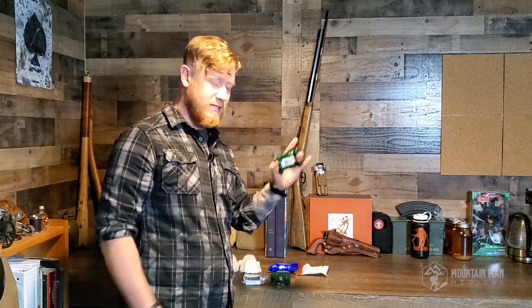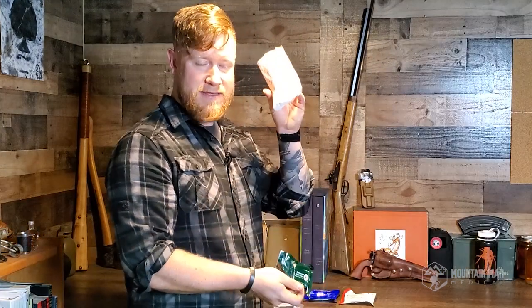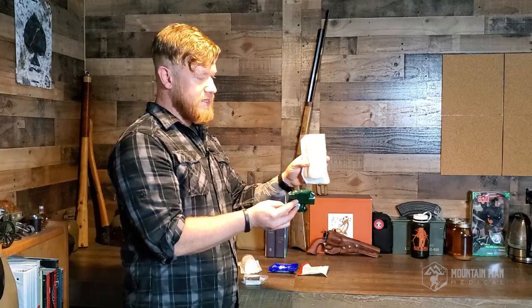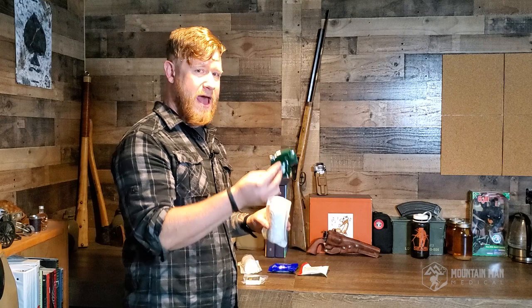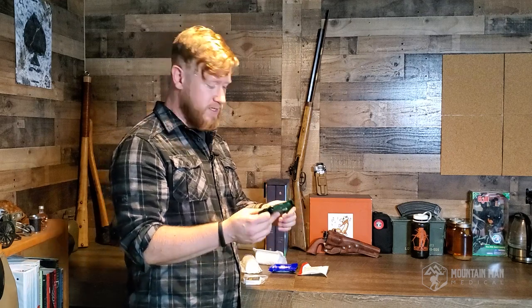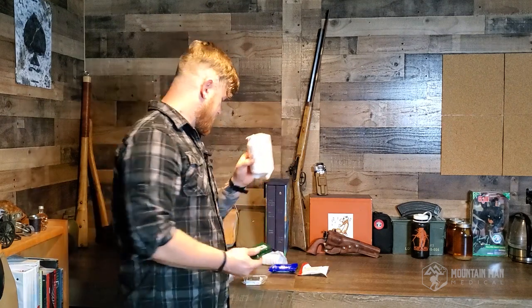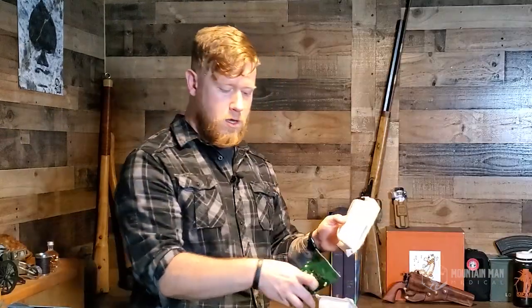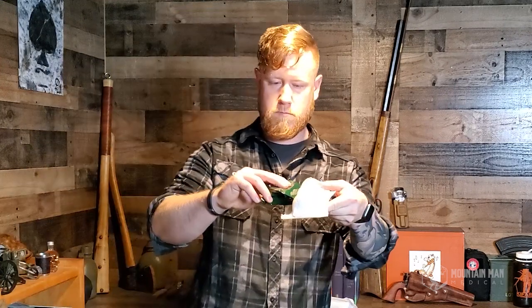Having something like this compared to this is generally a pretty good idea, and this is the exact same size. The reason for that is because this isn't vacuum packed — this is. So this has got a lot of extra air in it. To get around that, they vacuum pack it in these nice tiny little squares, and these squares are pretty dense. Once you got all of the air taken out of it, it sounds a little bit like a brick. So this might be a better option. You can carry easily two of these and still not have the same footprint.